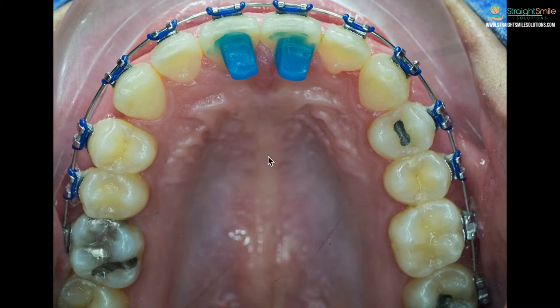You can see here in the picture these are some handmade ones. These are made out of a composite material — basically a plastic that can glue to your teeth, not ceramic or glass. It's no different from a filling material; it's just made blue so that we can identify where it is and make sure to remove it all.